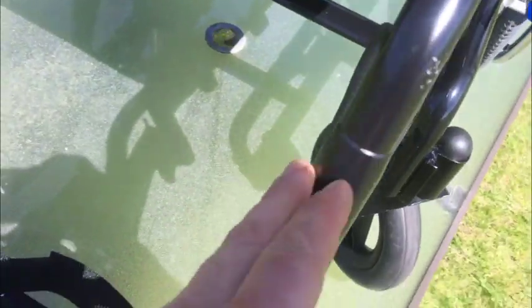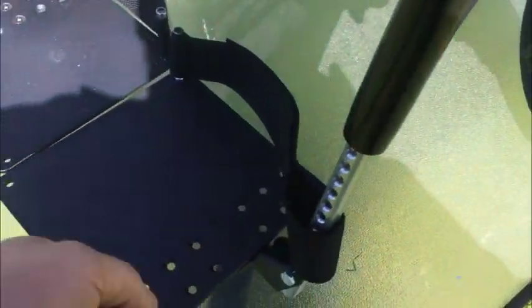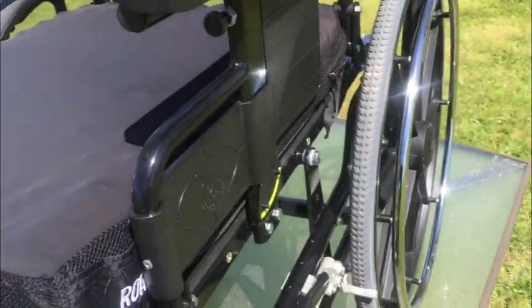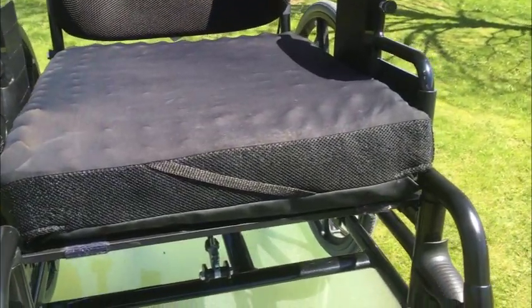I do have the retaining straps that go on the back — just not pictured. Depending on what your rider's requirements are, these are adjustable up and down. The armrests are adjustable as well. If you have any experience with these chairs — perhaps you already have one and want a secondary — you already know the adjustments that are required.